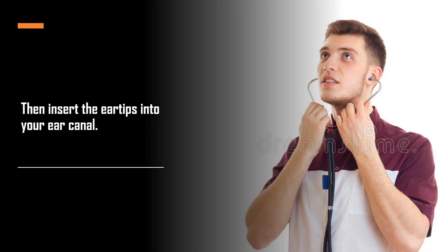Now you would be wondering, why do I have to hold it like that and wear it this way? What difference does it make? That is because when you hold it this way, the ear tips will align with your ear canal and you'll be able to fit it firmly in place and you'll be able to better hear the sounds when you auscultate.